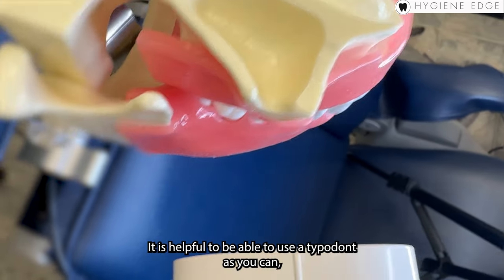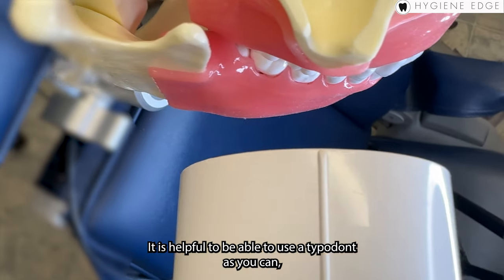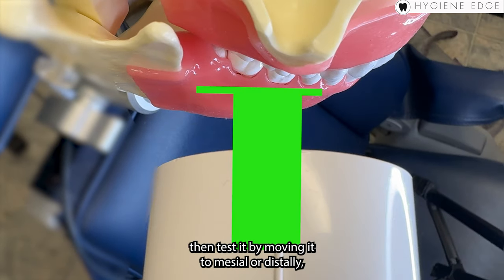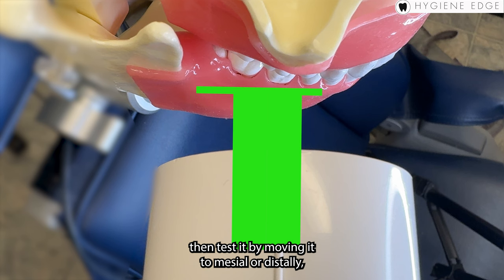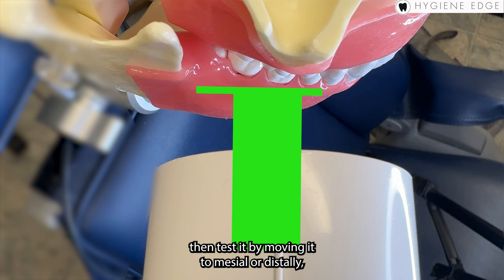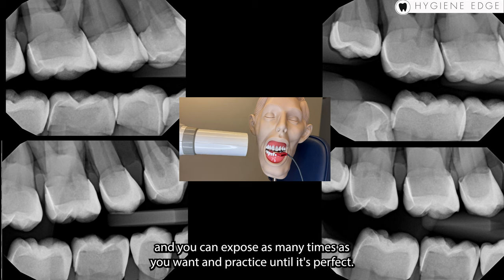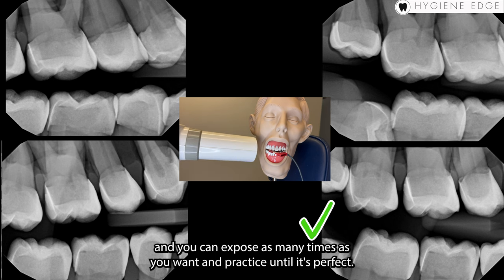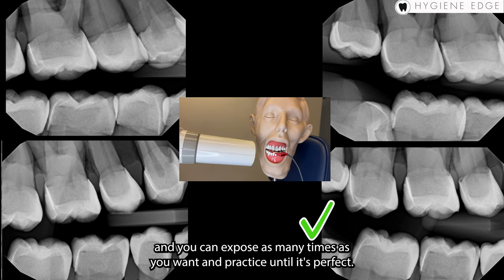It is helpful to be able to use a typodont, as you can then test it by moving it mesially or distally, and you can expose as many times as you want and practice until it's perfect.